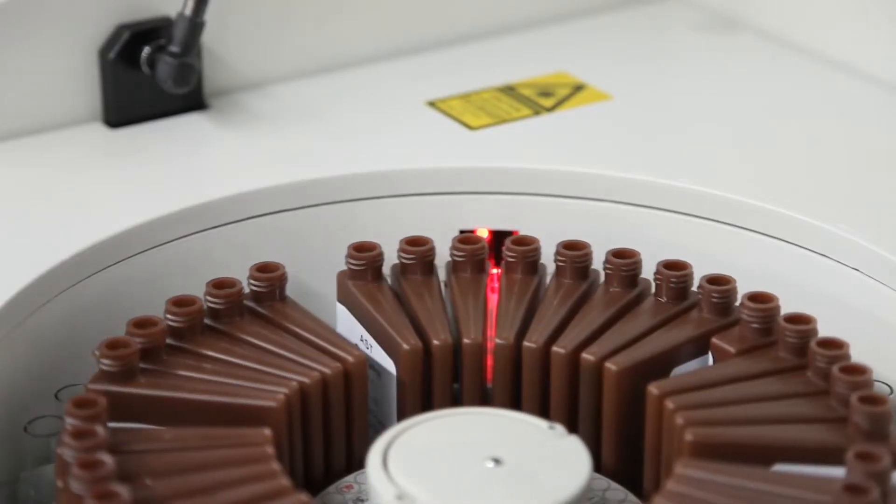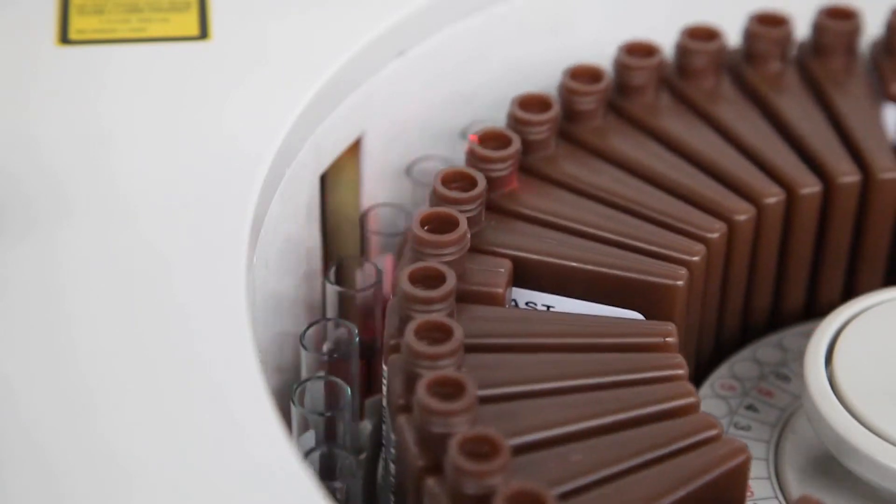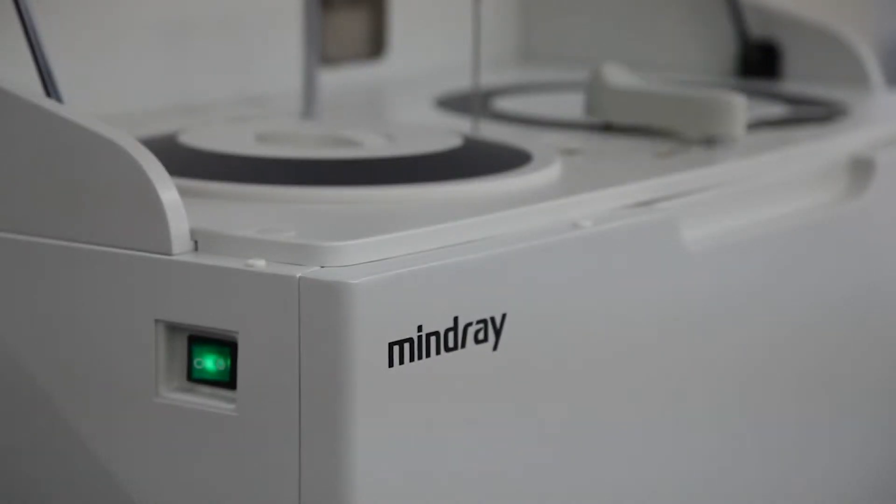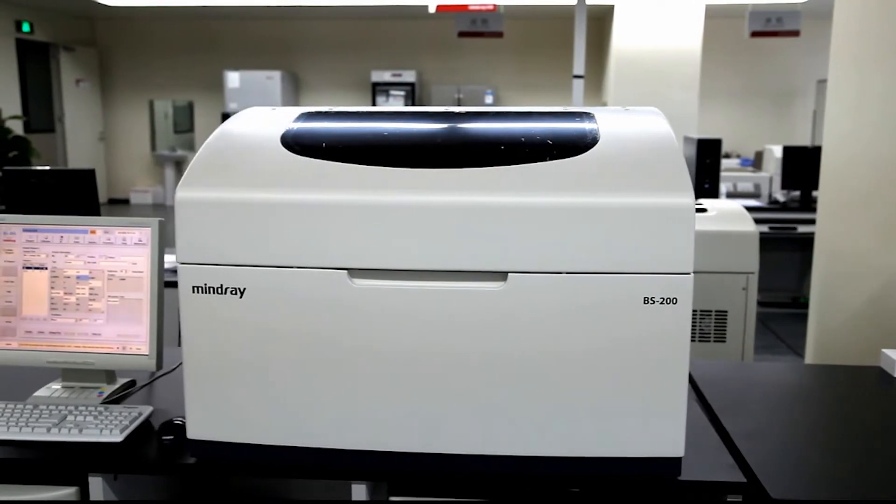An internal reagent and barcode reader enhances sample and reagent management. The BS200 analyzer is highly compatible with most LIS interface systems.